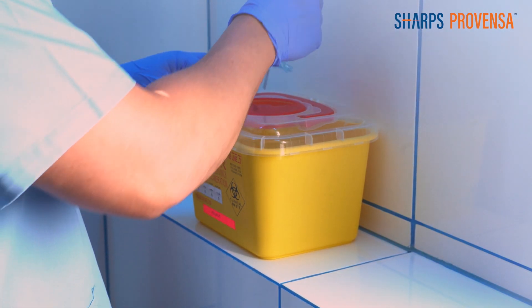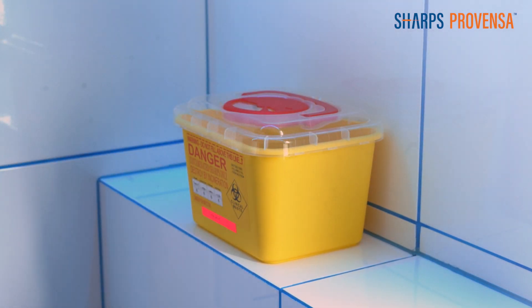When complete, the Sharps Provenza is safe and ready to be disposed in a Sharps container.